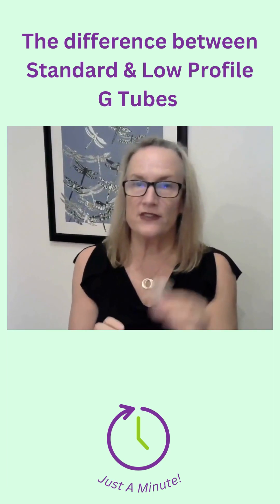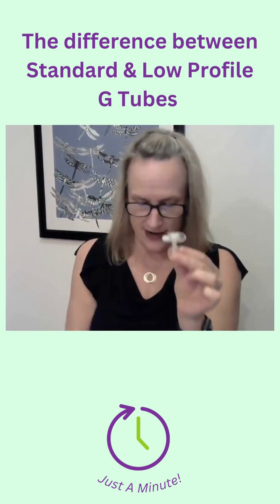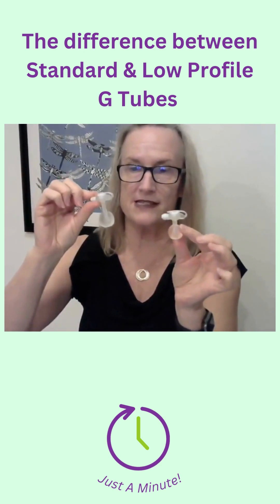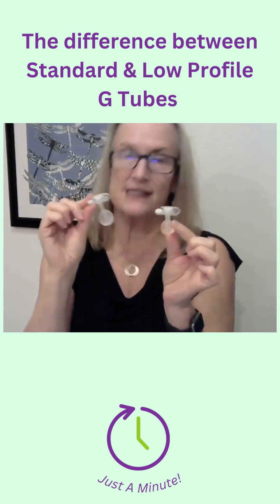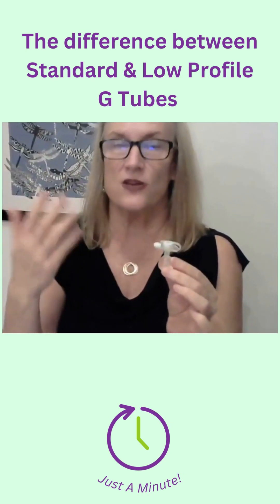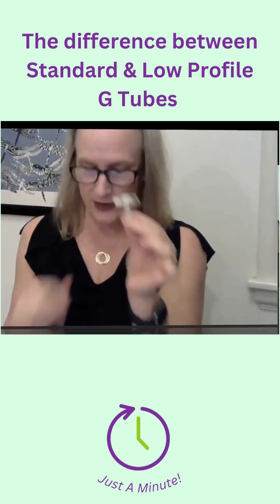With the low profile device, sometimes called a button, they come in different sizes. This is the stem length here, and they come in different sizes to accommodate different patient weights and sizes as well. So with these tubes, they need to be fitted and sized for that individual patient's needs, and as patients change in their weight — like with children who are gaining weight — the tube needs to be upsized so that the stem length fits properly.